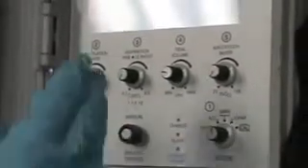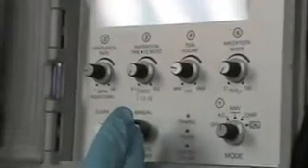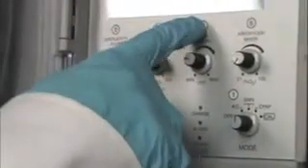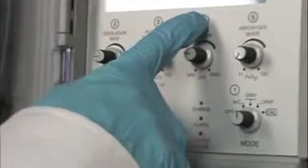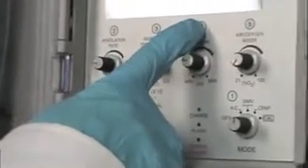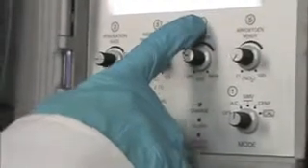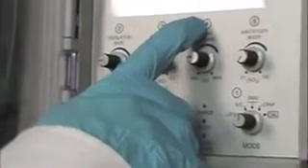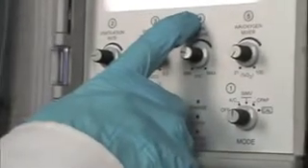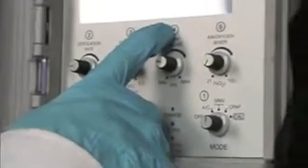The big difference between AC and SIMV is a non-mandatory breath. In the SIMV mode, if a patient wants to take 20 breaths instead of 12 breaths, the ventilator will deliver 12 breaths at a tidal volume of 500. On a non-mandatory breath that the patient triggers, if they only want to breathe 250 mils, then that's the tidal volume they're going to get delivered. So the machine will not mandate a volume in the SIMV mode on a non-mandatory breath. Does that make sense? Mm-hmm. Okay.